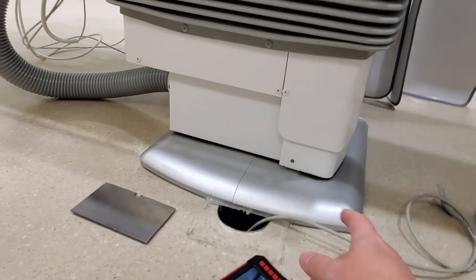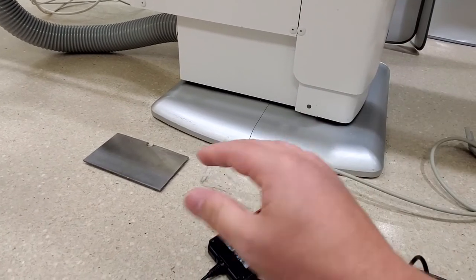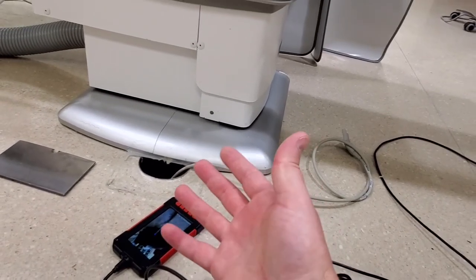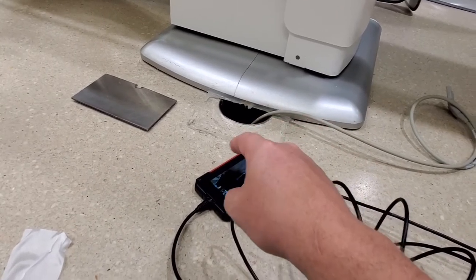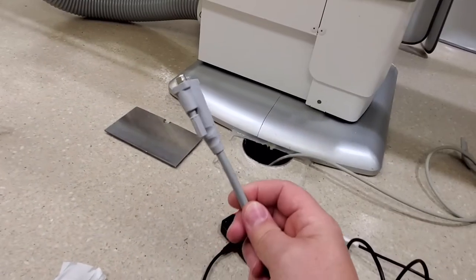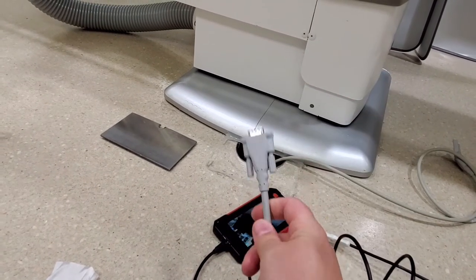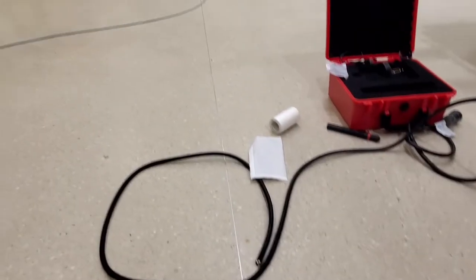I'm in a very special OR room. This room generates tens of thousands of dollars every single day, and not having this GE patient monitor cord kind of shuts down this room. If I would have paid somebody to come and fish that out, it probably would have been well over a thousand dollars to fish it out and run a new cable. So the other thing I'm going to show you guys is we are going to run a new cable in the stead of that one because that one's broke. That was the point of this whole project and I'm going to show you right now.